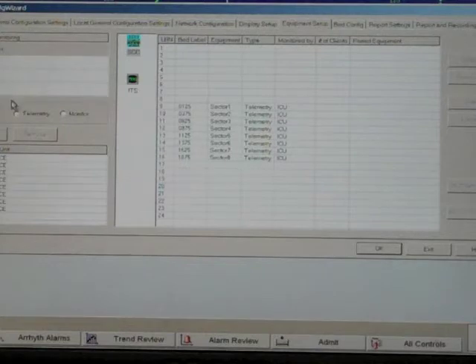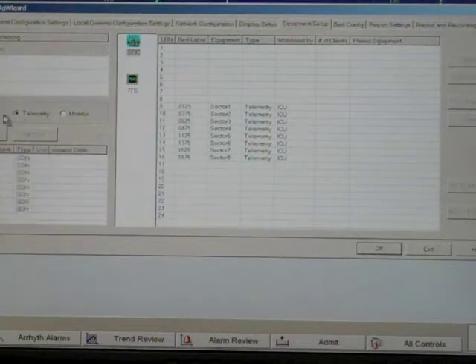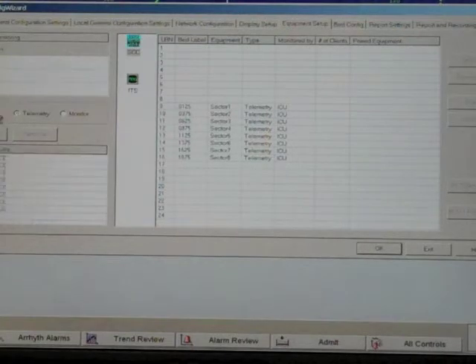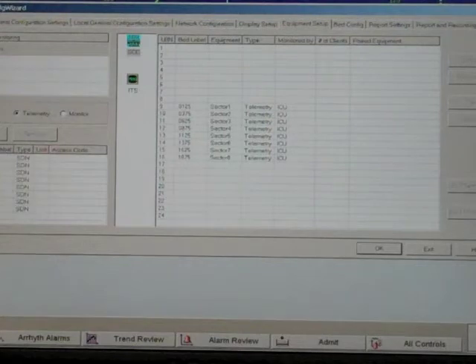Second, check to make sure all of your beds and telemetry units are set up. You can switch back and forth by selecting beds or telemetry above the box where they are listed.